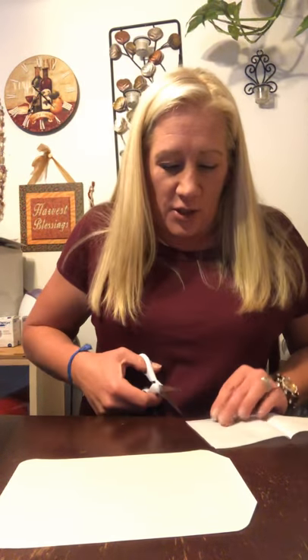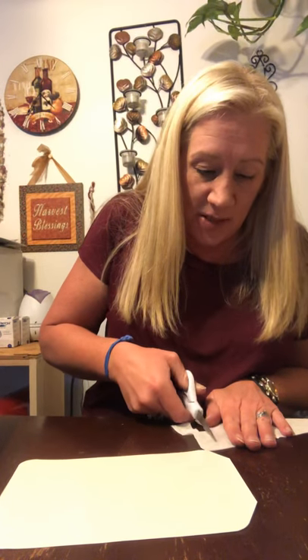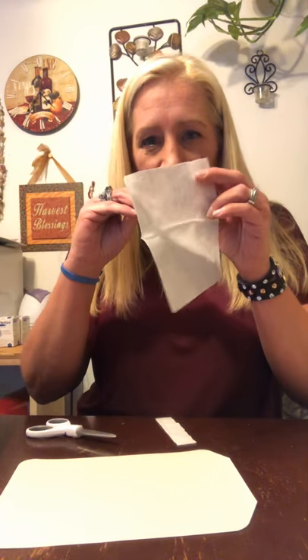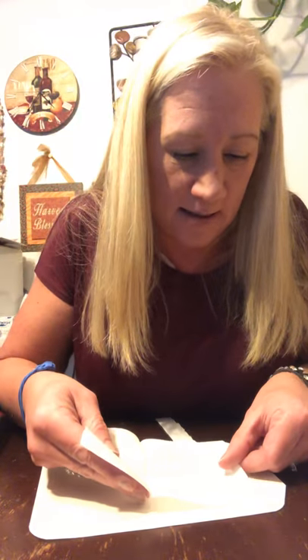When you open up your gauze, there will be two pieces. You'll see one end is open and one end is the closed, folded end. I'm going to put the open side down and cut off the excess — measure and see how much you need to cut. I choose to put the folded side up because otherwise it can separate, and sometimes it sticks through since it's such a thin layer. Better safe than sorry.